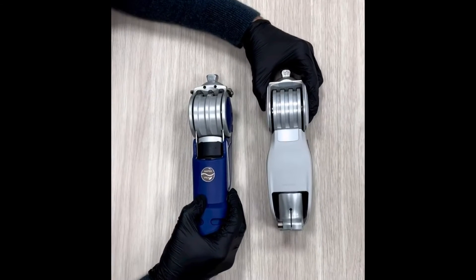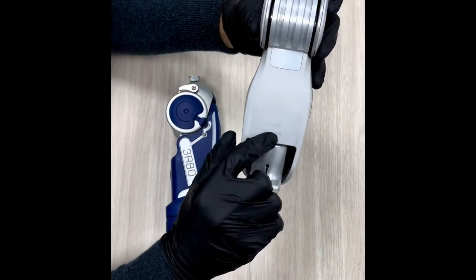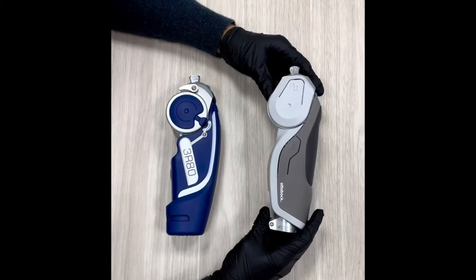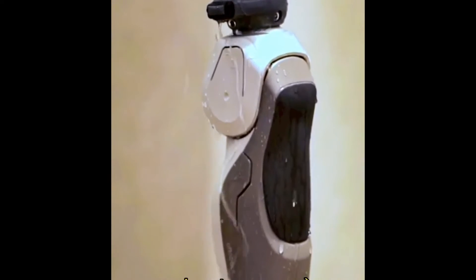The integrated rotation hydraulics control the swing phase and secure the stance phase. Damping for flexion, extension, and the stance phase are individually adjustable. This allows comfortable walking over a broad range of speeds.